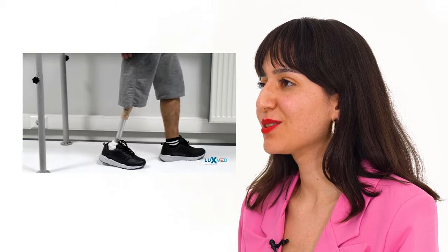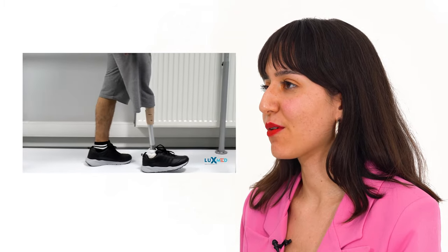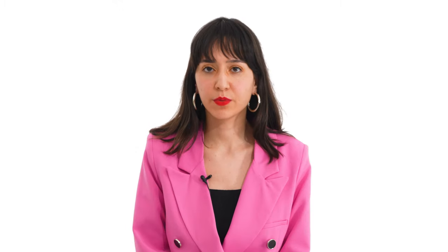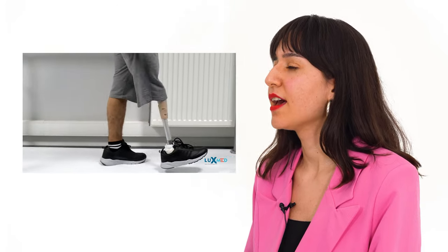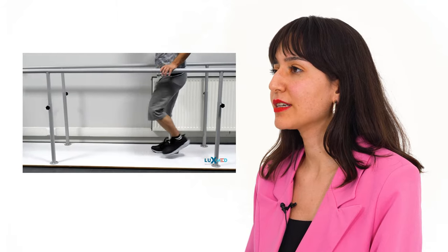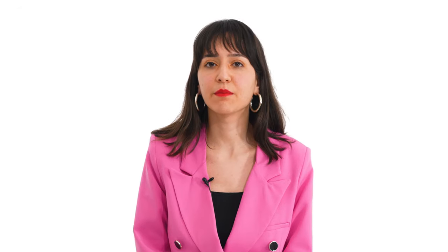The first type is locked or brake knee joints. The knee joint of the prosthetic leg is controlled using a brake or locking mechanism during opening and closing. For example, in a prosthetic leg with a locking system, the knee joint is in a locked position while the patient is walking, and when he or she sits, the lock is deactivated and the knee can be folded as needed.